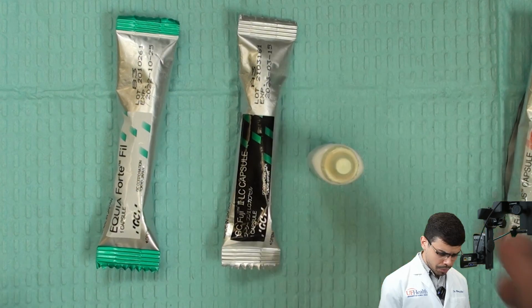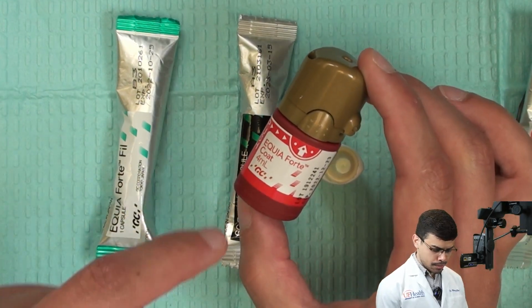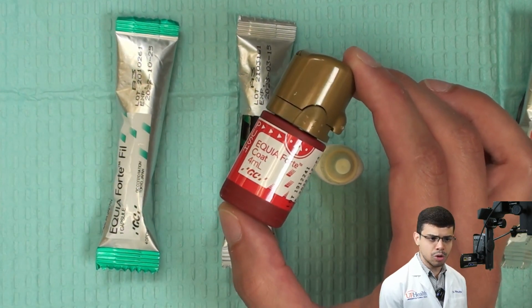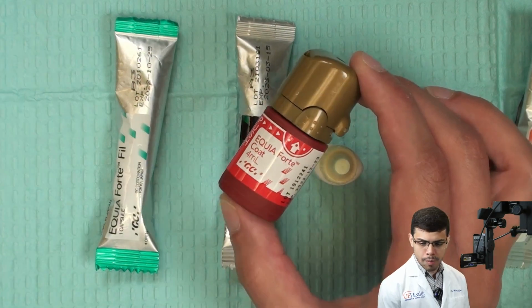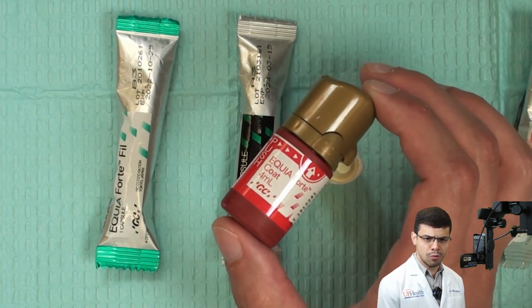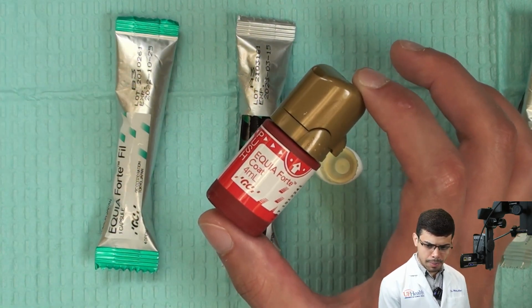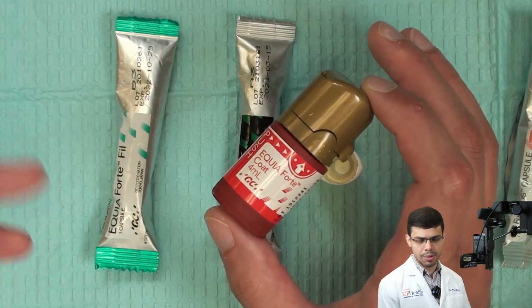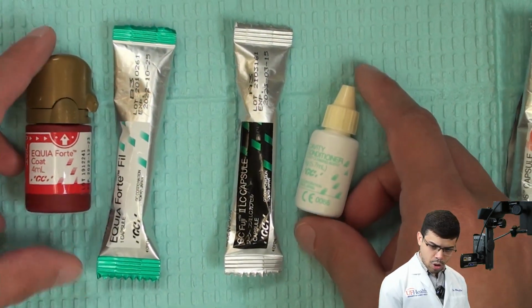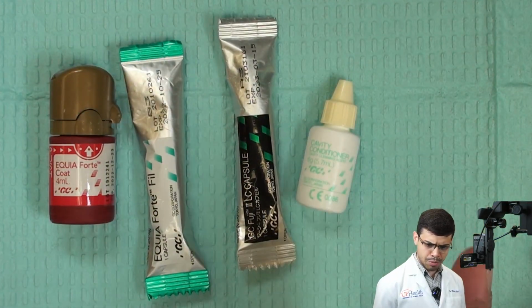And just one more important fact about these restorative cements, they require coating on top. So this coating is a resin-based coating that is very similar to a dental adhesive, and you apply it on top so you can protect the material during maturation. This coating is to stay there only for the first 48 hours, but it's fine. You're just gonna apply that, protect the material for these first 48 hours, and then the material will set completely. Okay, so pay attention, don't confuse. These items here are gonna be used in restorative direct procedures, all right?